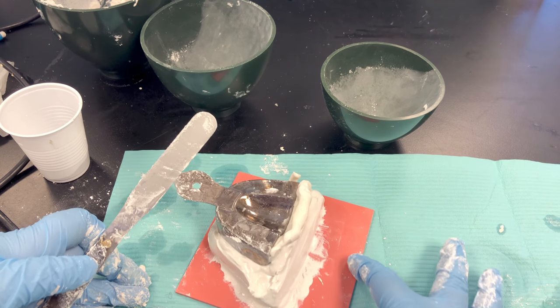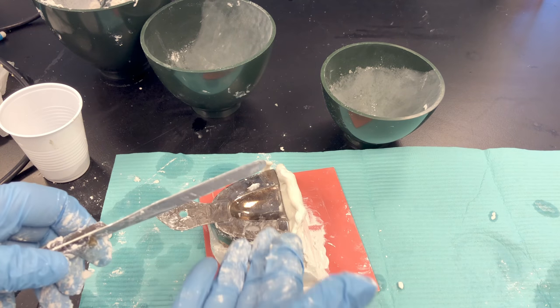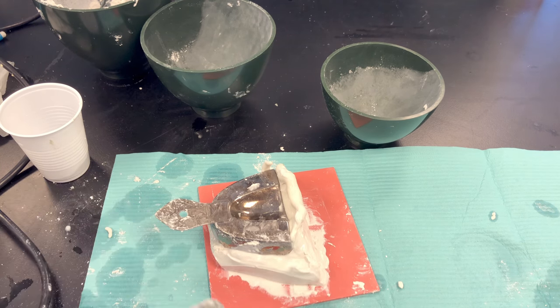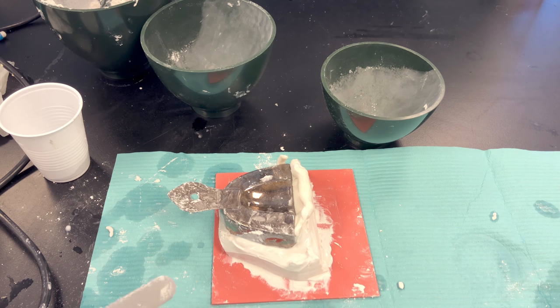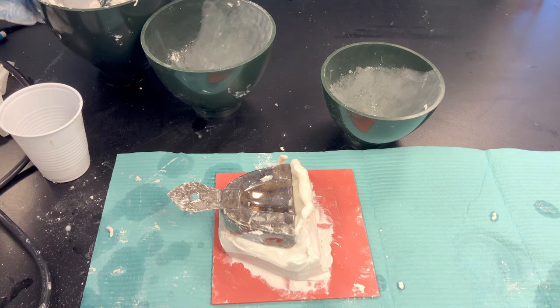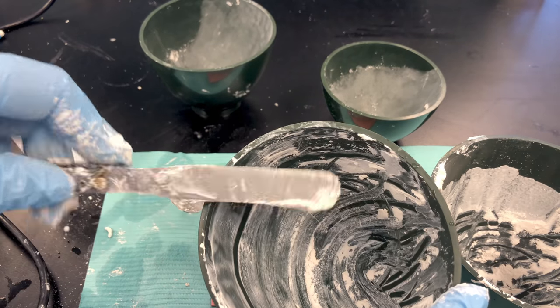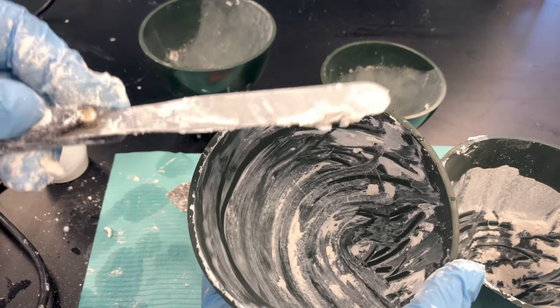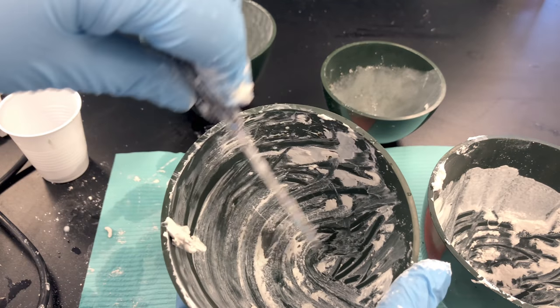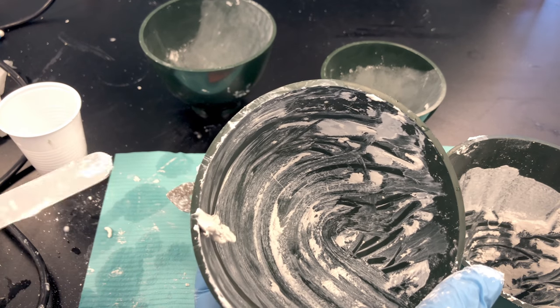Only slide up the back — do not slide up the sides. We want the tray visible. If the tray disappears and gets covered in stone, it's going to be a lot of hard work to get it unstuck. We'll let this set up — it'll take about 30 to 40 minutes for the stone to set, and then I'll show you how to separate them. If you have excess stone, put it in the trash. Don't let it go down the drain — stone will set up in water or underwater. Rinse out what little remains in a sink that has a plaster trap to capture sediment so it doesn't enter your plumbing pipes.